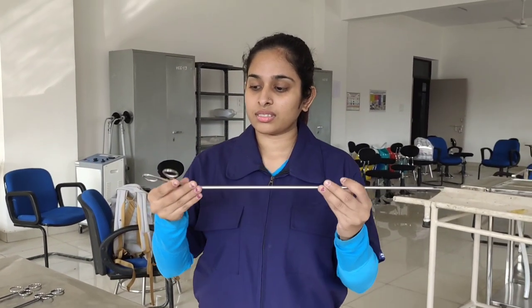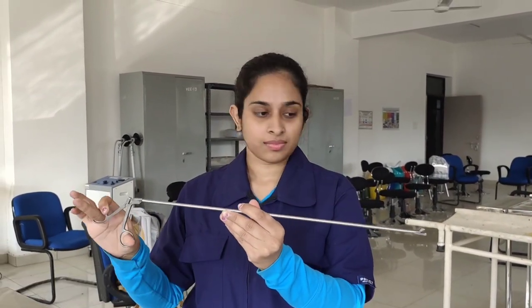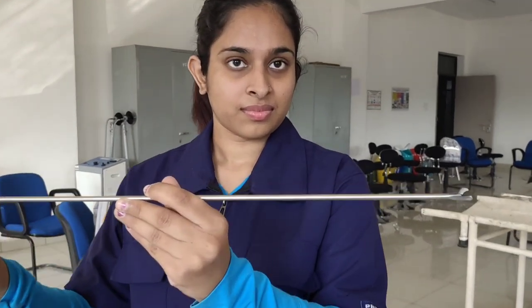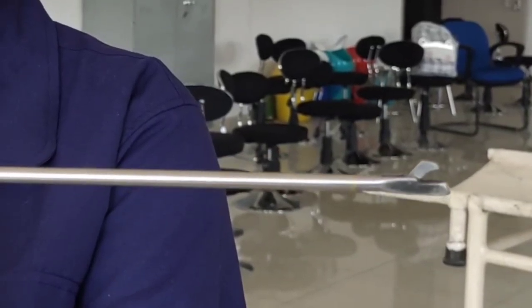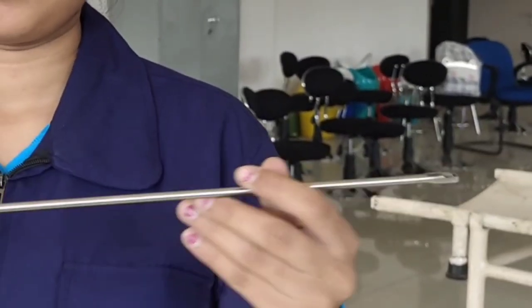Next let's talk about this uterine biopsy punch. As the name suggests, this instrument is used to take biopsy samples from the cervix or the uterus. For the procedure, we insert the biopsy punch near the required tissue, open the punch, close it back in, and we finally have our biopsy sample, and then we take it out.